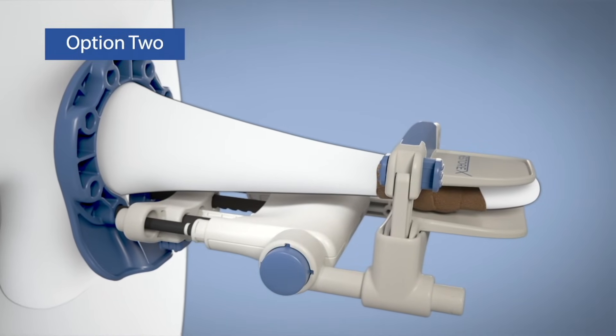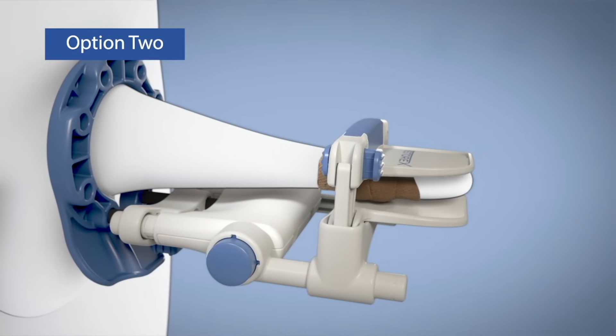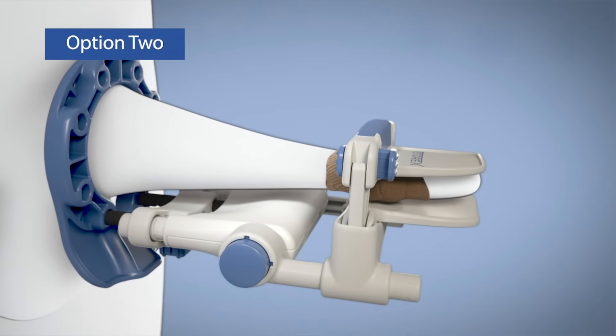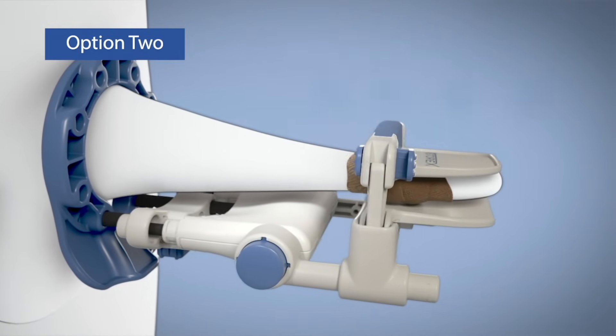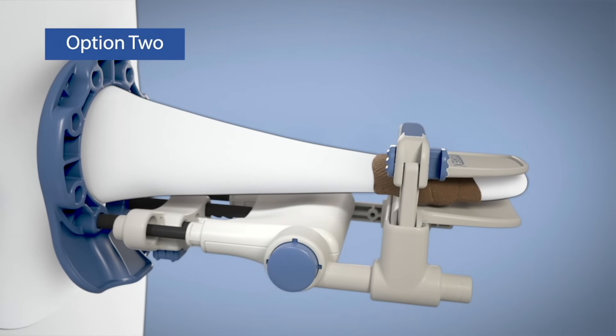Most often, the white bands will not appear. If they do, re-lock the tension rods, advance one more notch on the extension rods, and release the lock on the tension rods once again. Repeat until the white bands do not show.